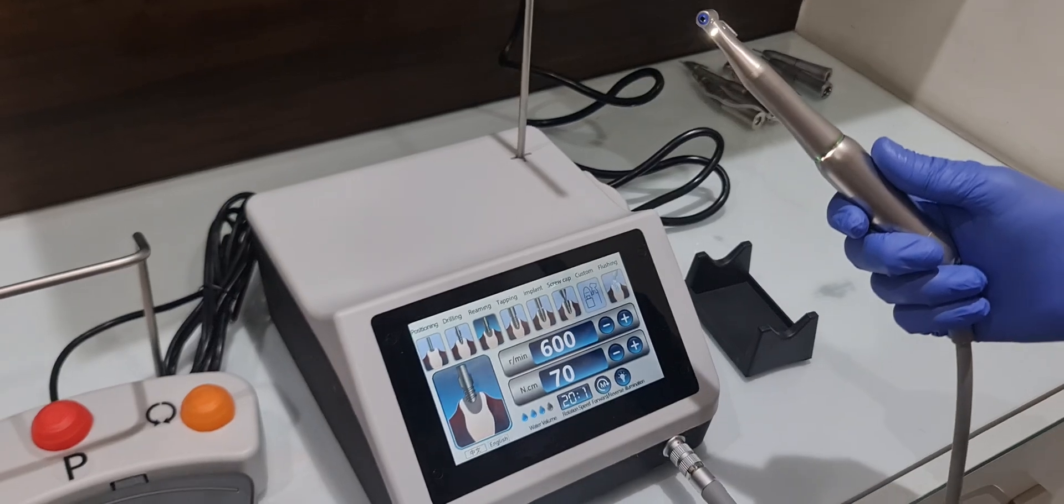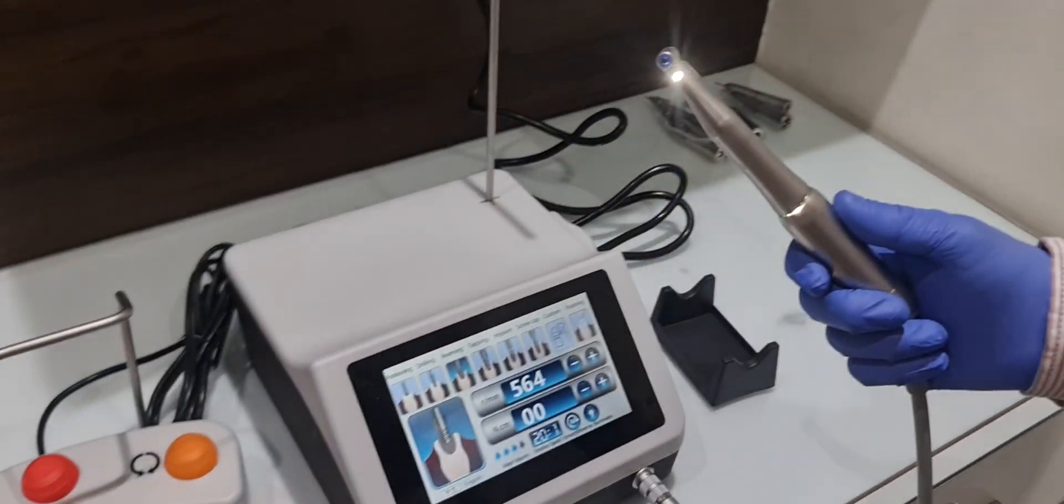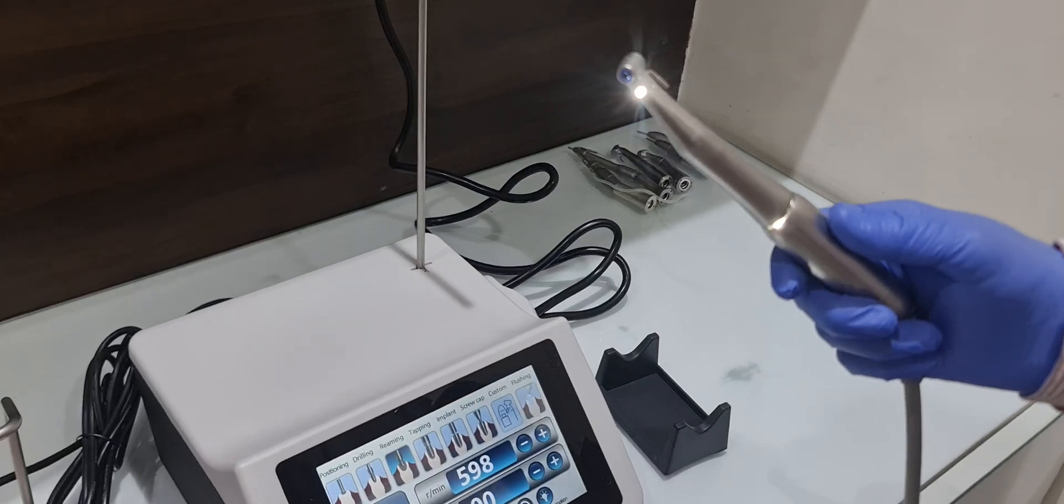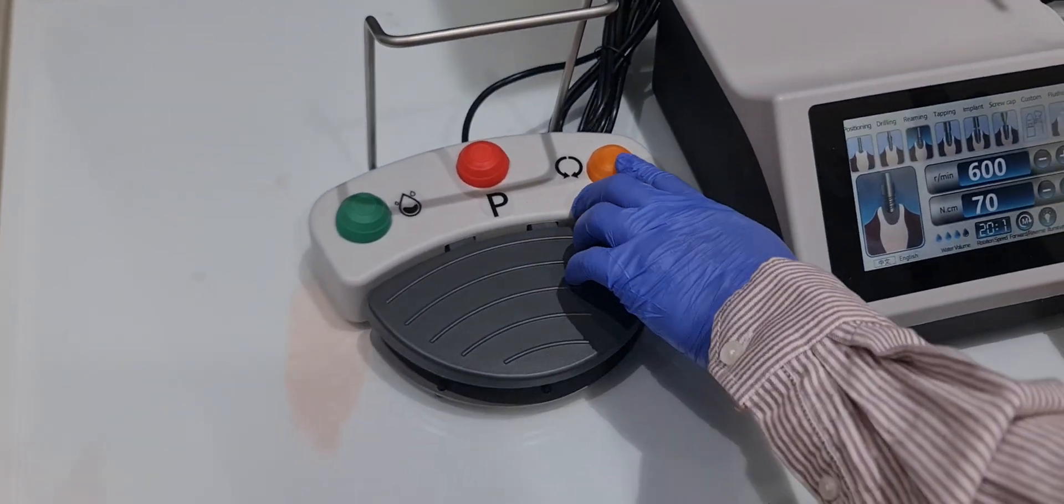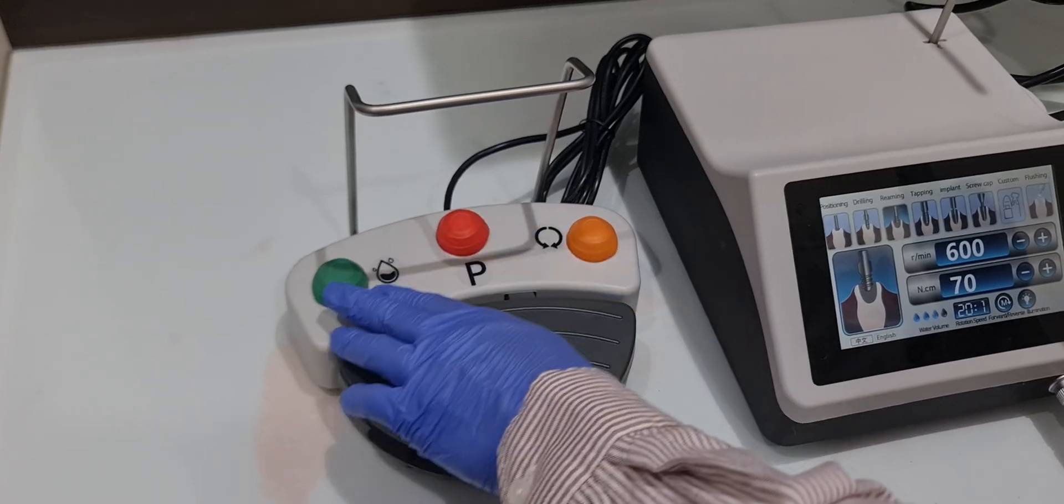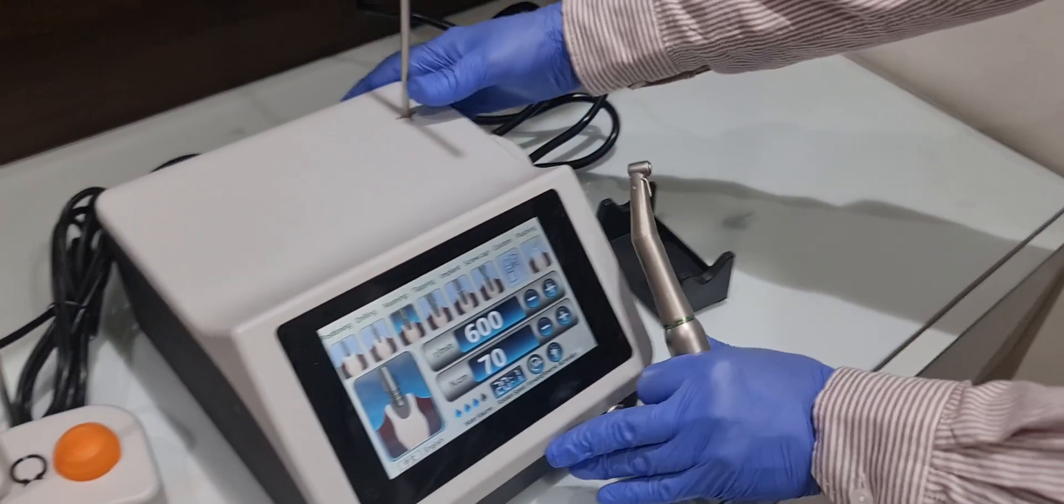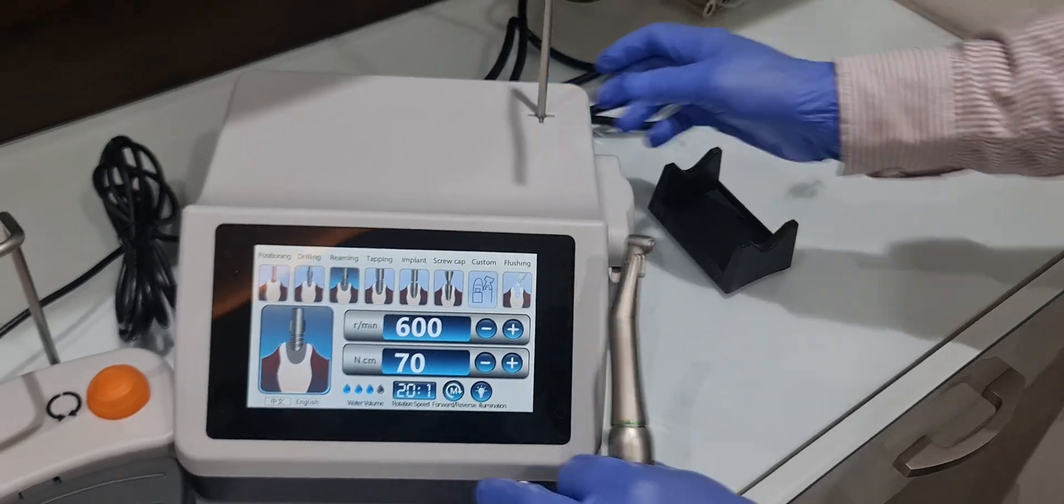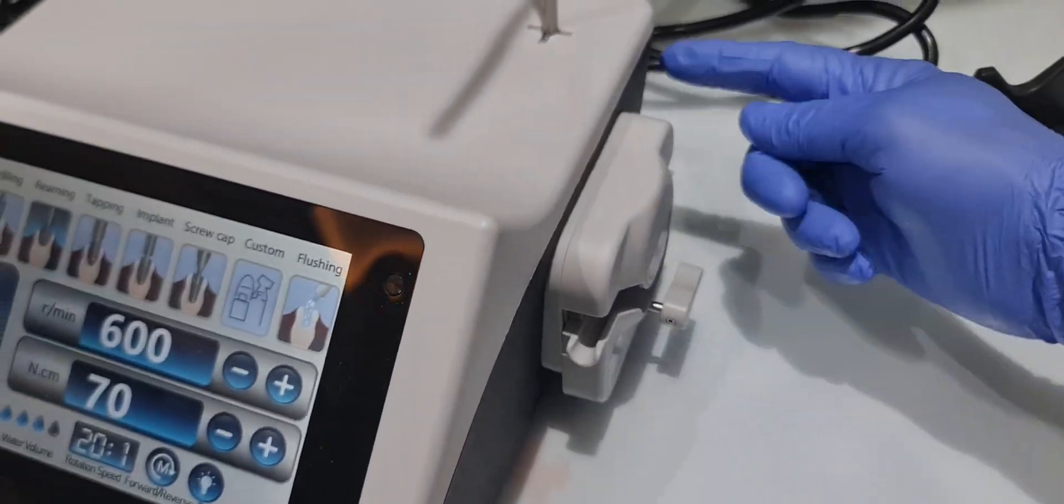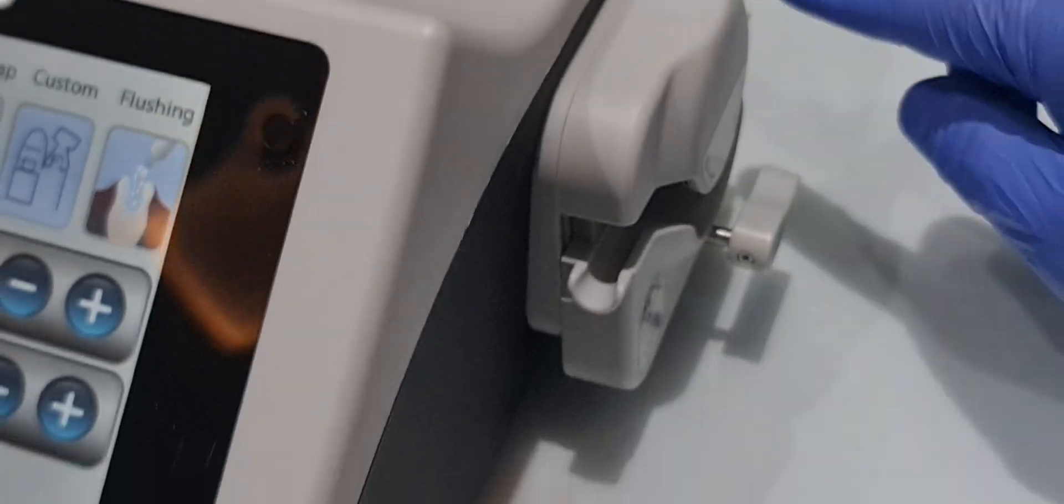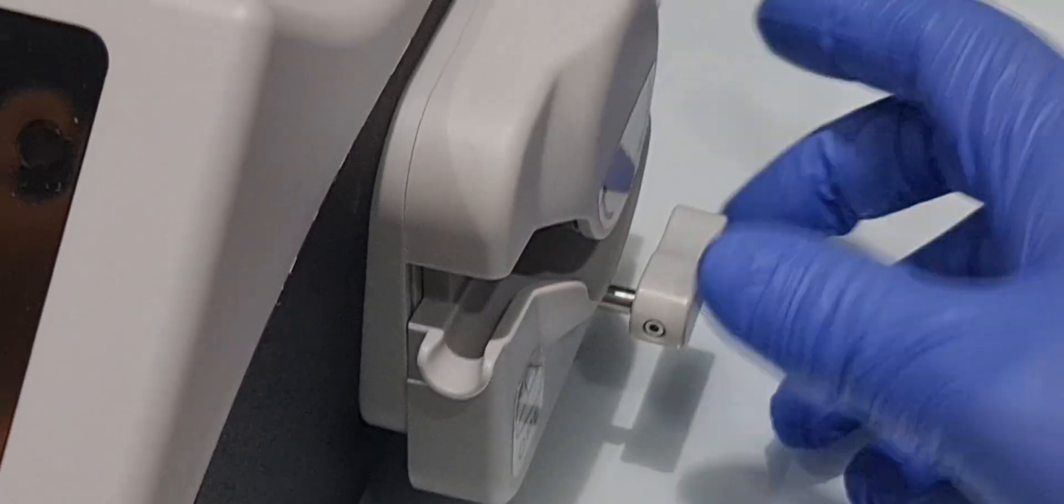It is a very powerful light, very easy to operate. The foot control has a forward reverse function, programmable and water control. The saline tubing you can use from here, and it is very easy to operate.